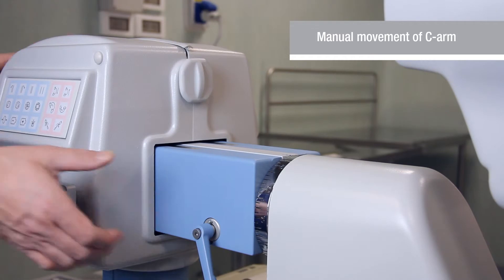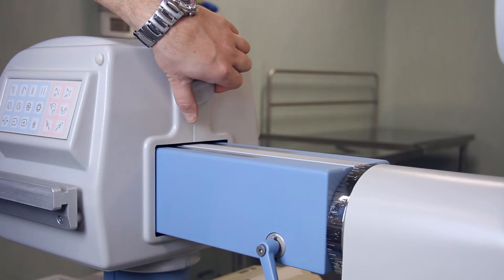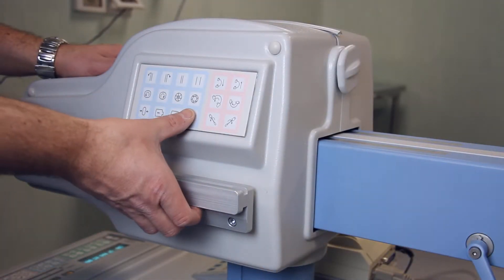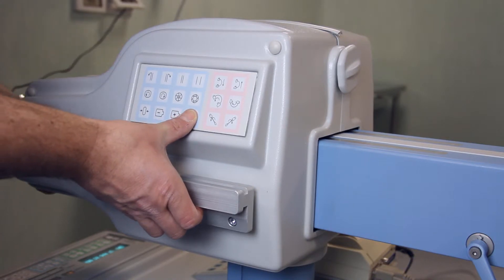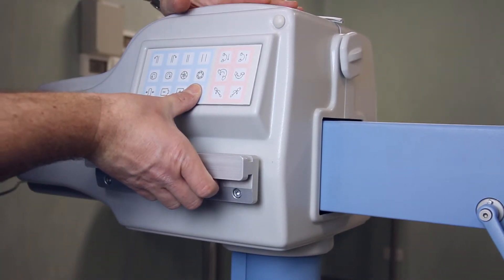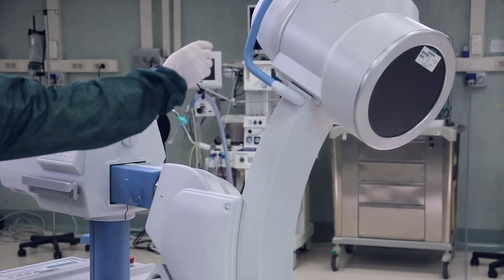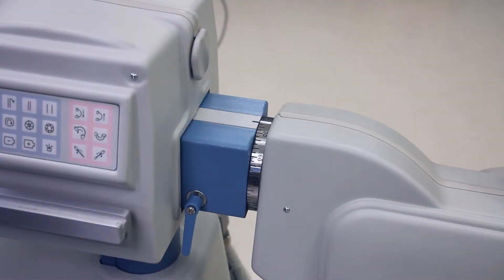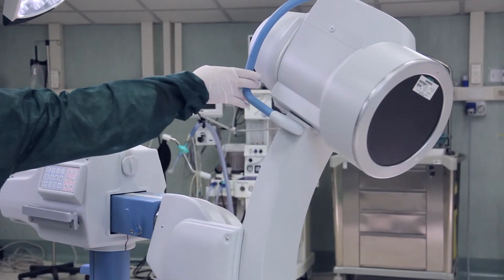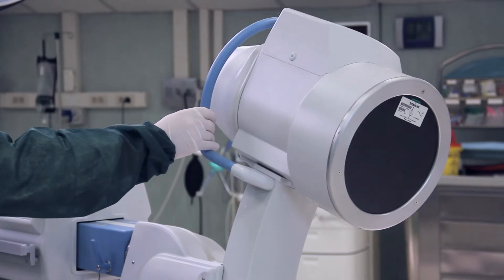If it is necessary to control the C-arm manually, simple fixators will fix its position. Vertical movement can be performed manually by pushing on the button while simultaneously lifting or lowering the arch. Having loosened the arch fixation, it is then easy to move the arch laterally using a handle on the image intensifier. Orbital rotation can also be realized manually.